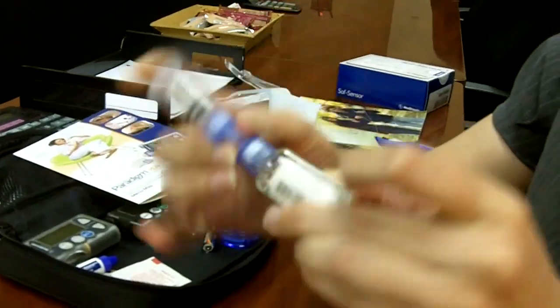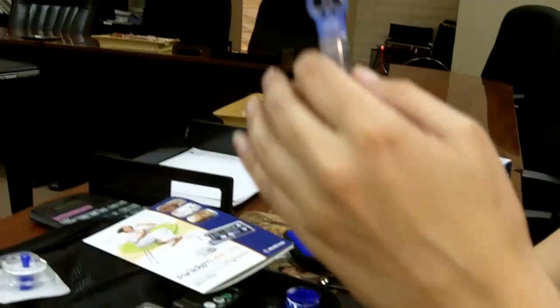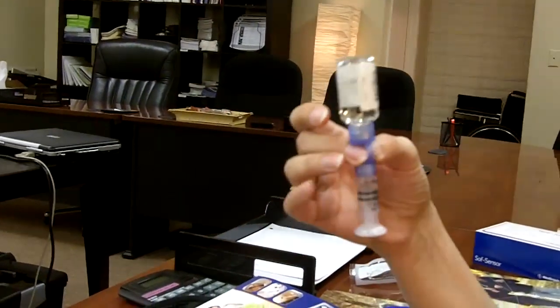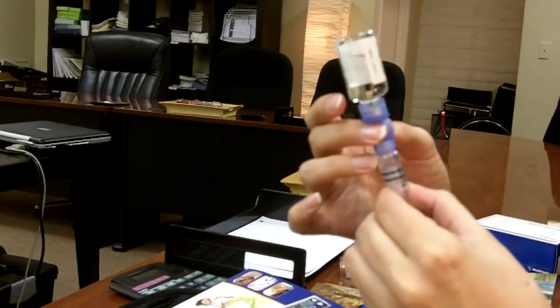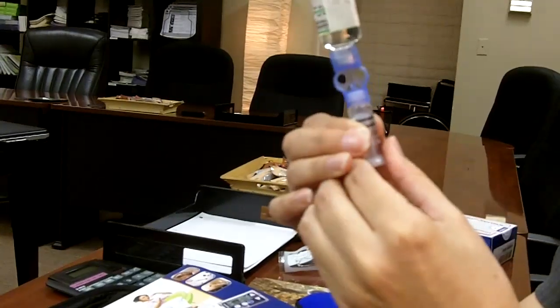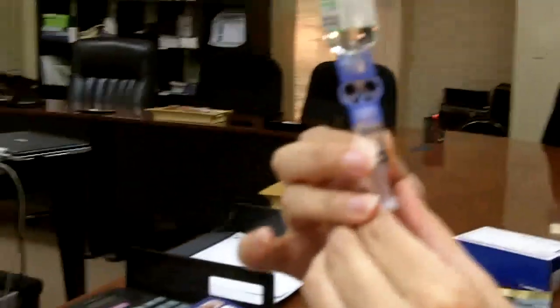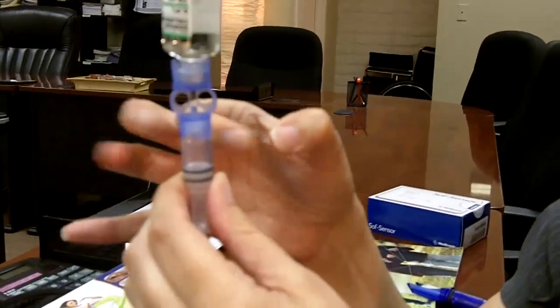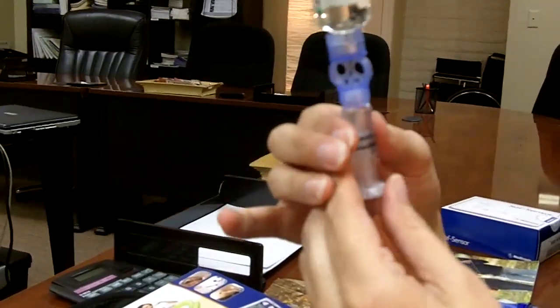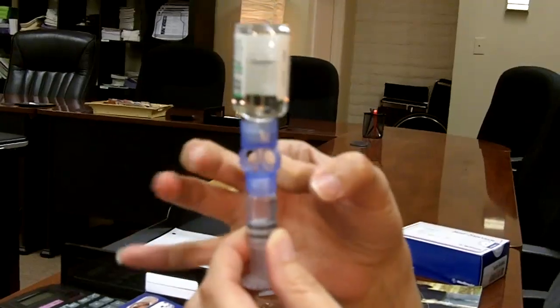Push the air into the vial and it comes back over. This works better with insulin than saline because saline doesn't like to draw out as well — saline tends to be very bubbly compared to insulin. Now, is it really important to get every little drop out? No. These little champagne bubbles are okay, but the big bubbles you want out.